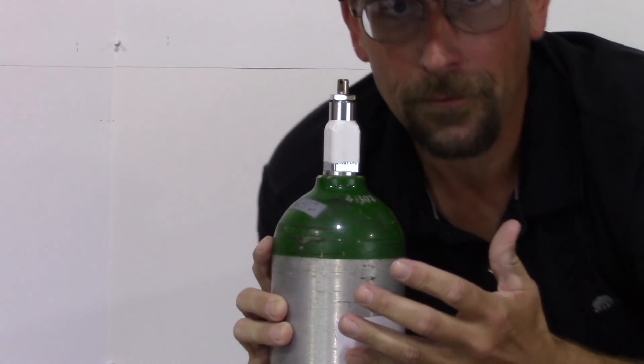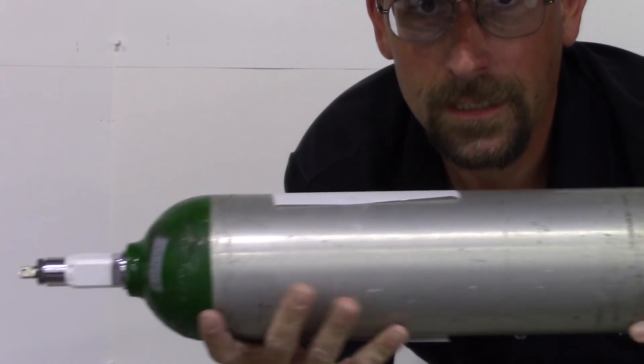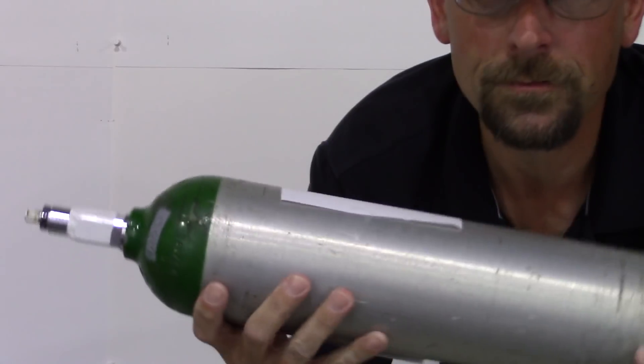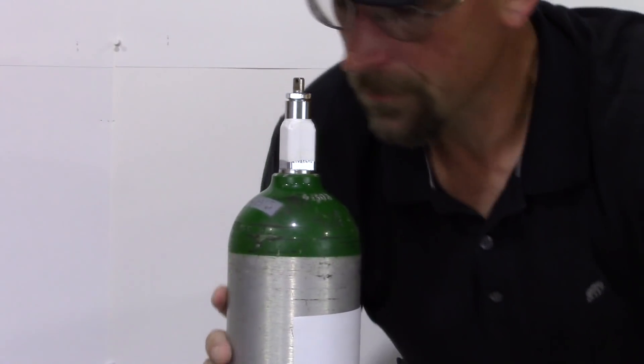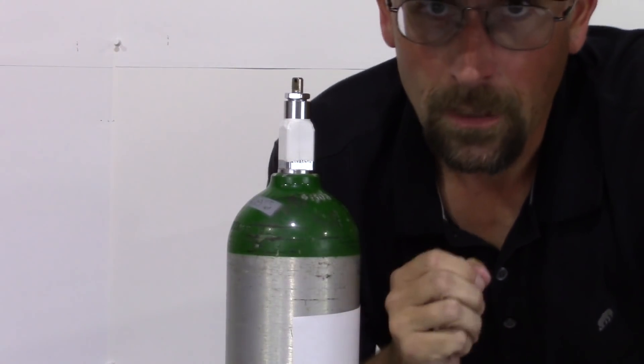These are pretty standard here. This particular tank is a size D, which at 2 liters would give you approximately 3.3 hours. At 1 liter, approximately 6 hours.